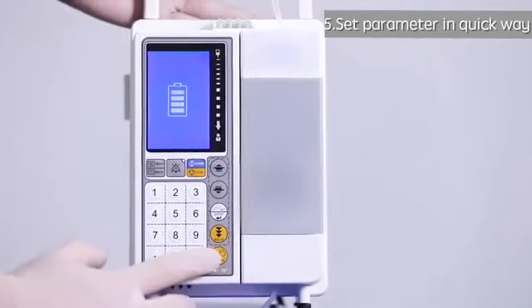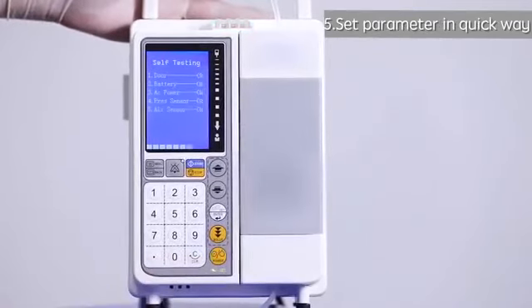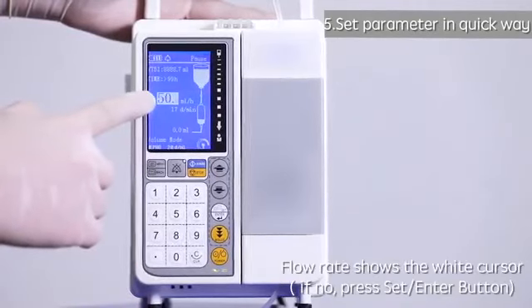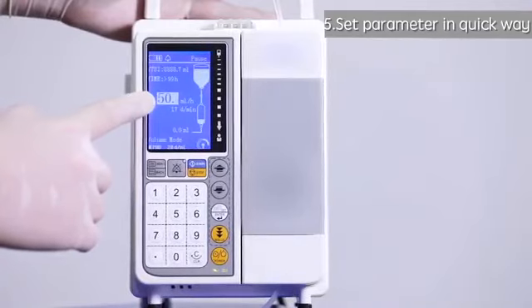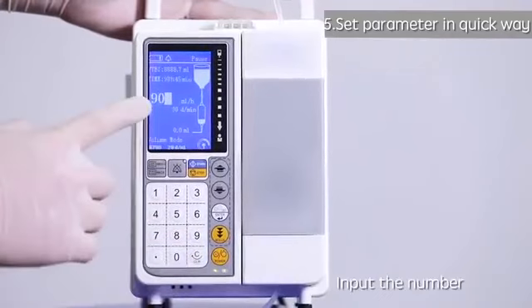5. Set parameter in quick way. Power on. Flow rate shows the cursor. If no change is needed, press Set Enter button. Input the number.